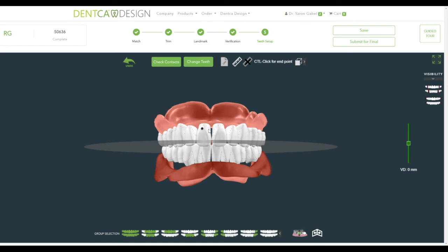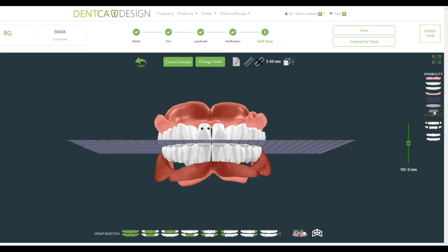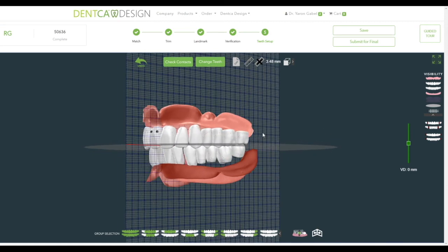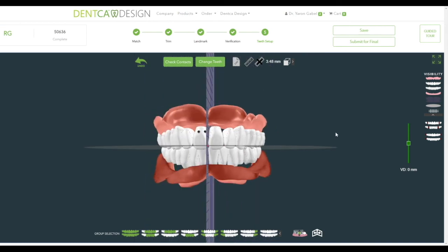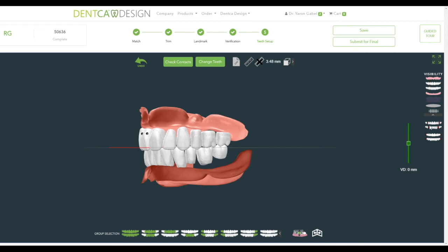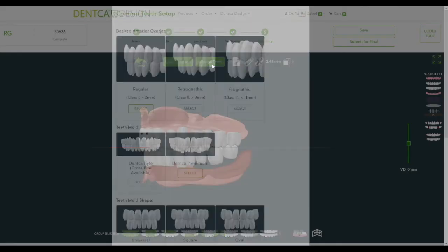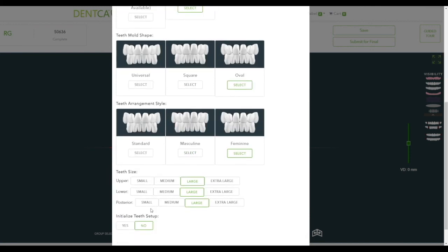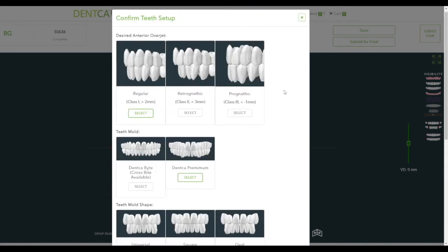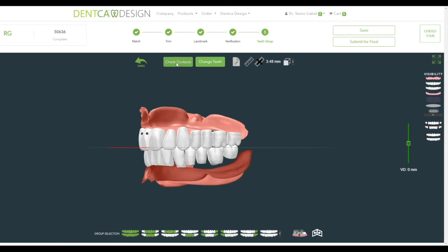If you would like to move teeth in both sides of the arch at the same time, you can use the mirror function to rotate or translate teeth as a set in a specific direction. To move a specific group of teeth, select the group from the bottom part of the menu and move them around as directed. A 1mm grid function can be activated on the right visibility menu and can be toggled to appear horizontally or vertically as needed. If space is limited, you may click on the function on the lower right side to remove the first premolars or second molars from the setup. You may change the tooth size or characteristics by clicking on the Change Teeth button at the upper section. In this menu, you can change any parameter previously selected and even reset the teeth setup by clicking Yes at the Initialize Teeth Setup option at the bottom.